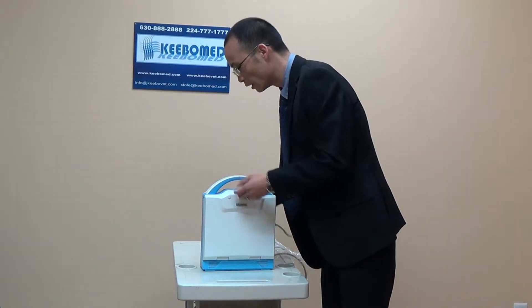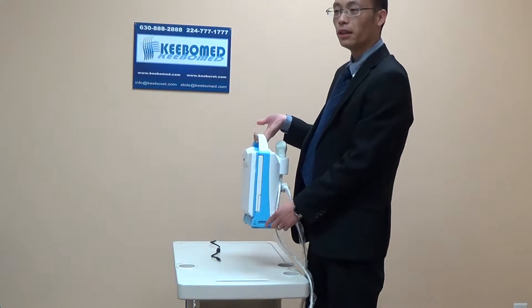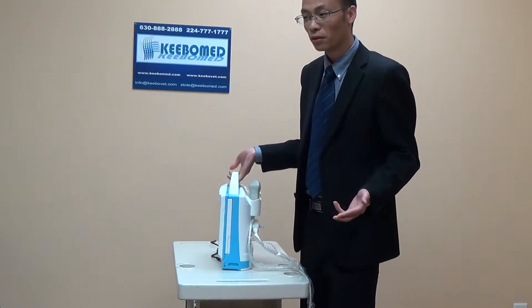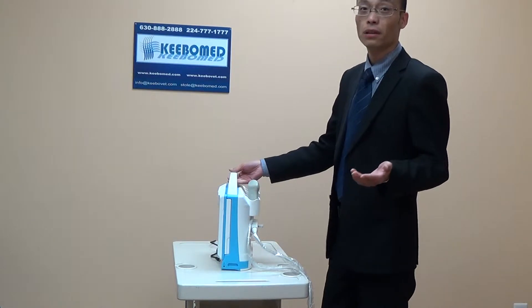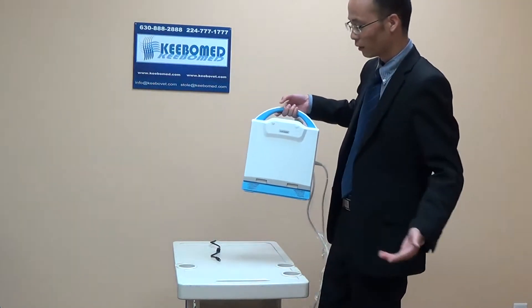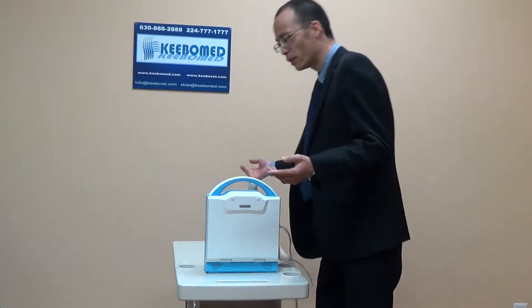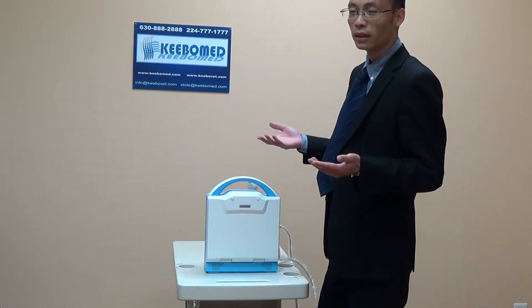This model also comes with a battery as standard configuration — you do not need to pay extra. For example, if you buy some other models like Echo 1 or Echo 3, you need to pay 300 USD extra for just one battery, which is not good for you. But this one has battery as standard.